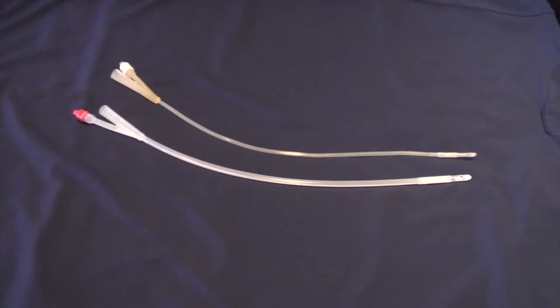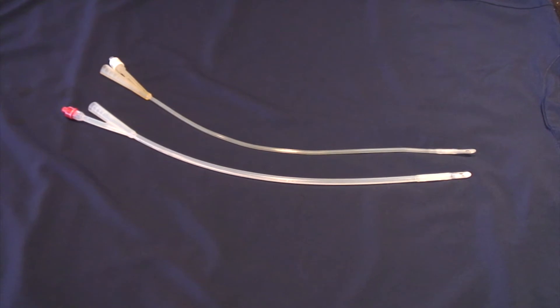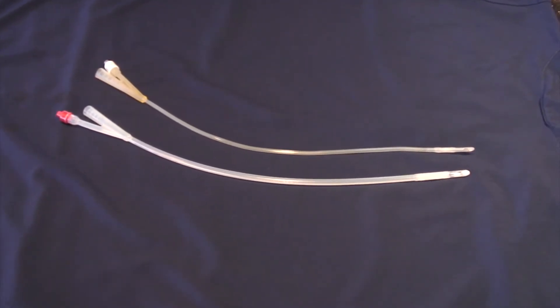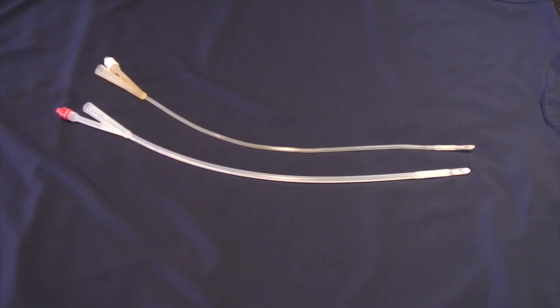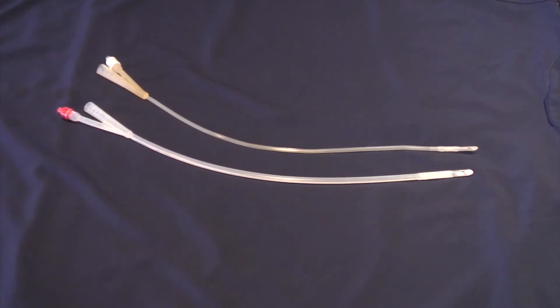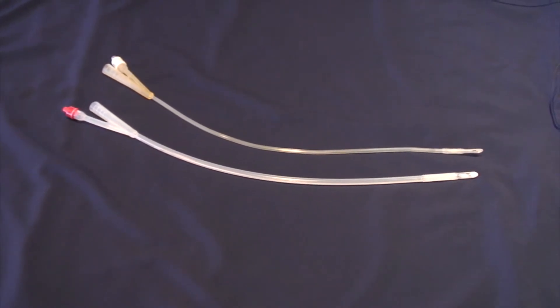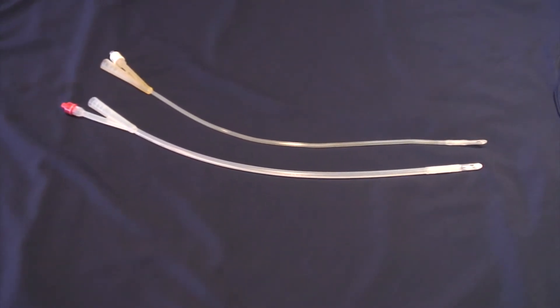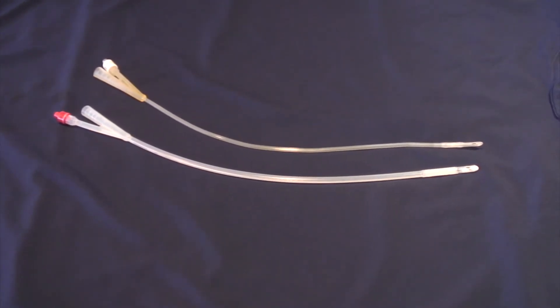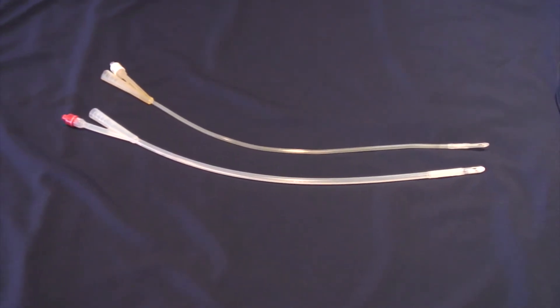This is a size 12 catheter for comparison. Smaller catheters have a tendency to curl up in the bulbar urethra in male patients. This often occurs when sphincter spasm happens as a result of the reflex when the catheter tip touches the distal urethral sphincter. The problem with catheters curling up in the urethra is that significant damage may occur, and if the balloon is inflated prior to obtaining urinary drainage then a ruptured urethra may occur requiring treatment in the future.